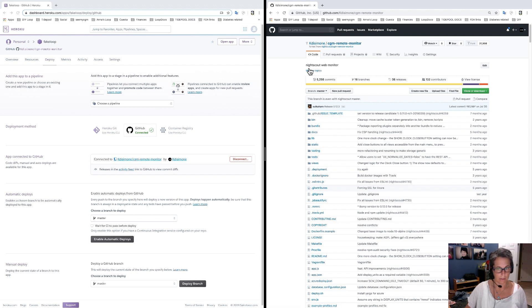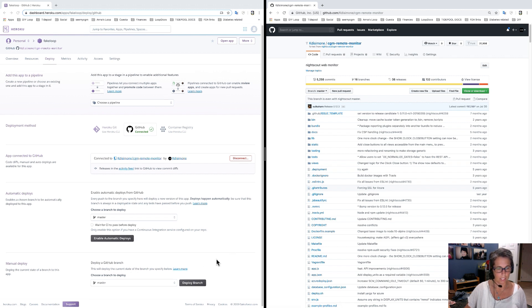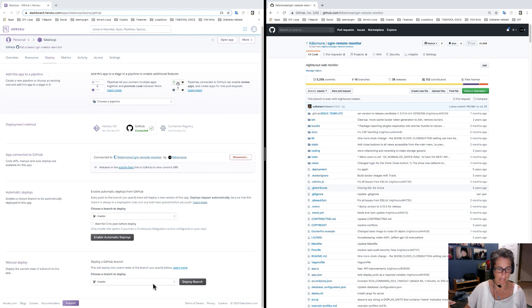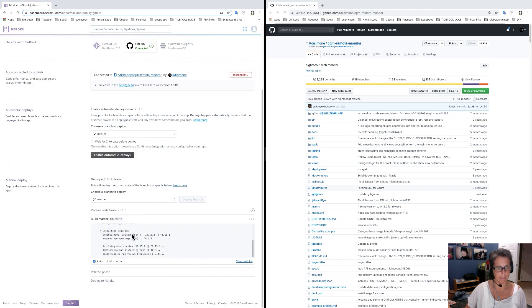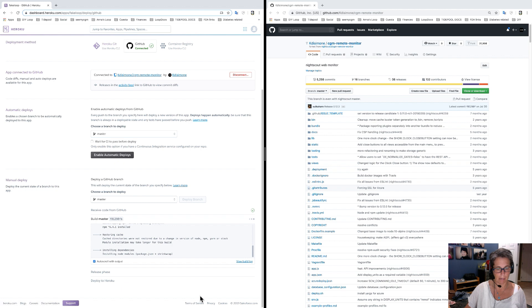Now that it's connected, you'll see sections with deploy buttons. Choose your branch as master and click Deploy. What this is doing is taking your updated code from GitHub — because you're now connected — and deploying it. If you scroll down you'll see the build process scrolling by. It takes about five minutes, and when it's done you'll see green check marks all along the bottom, and at the bottom it'll say 'View App.'